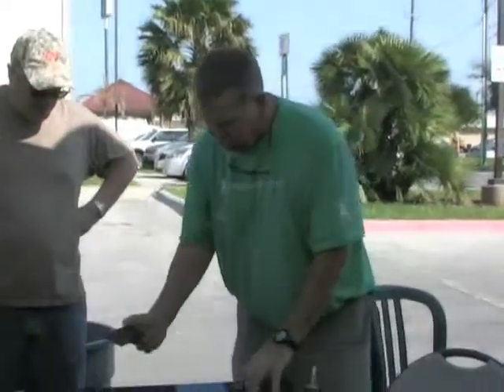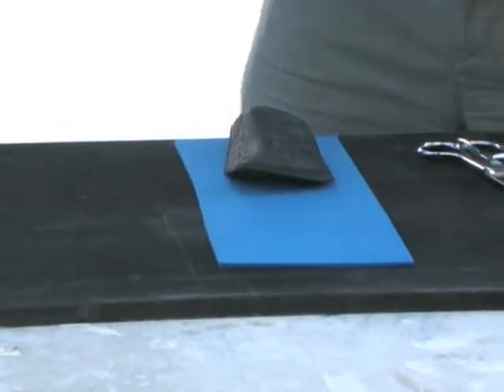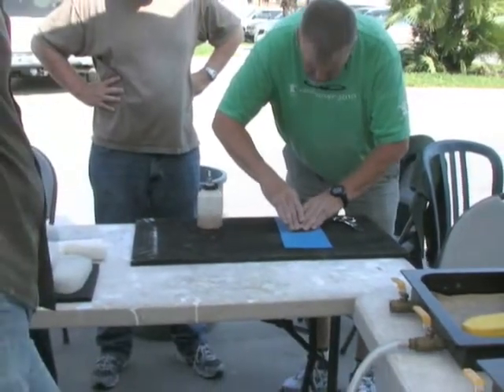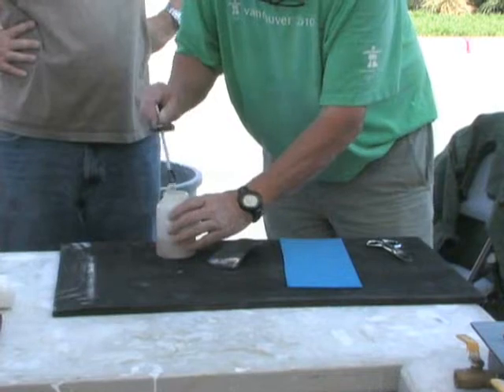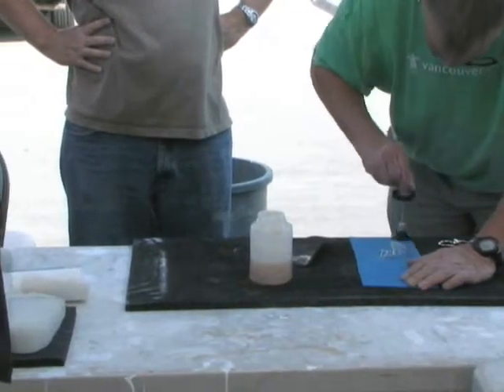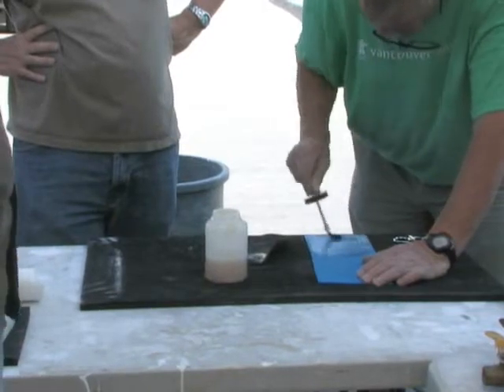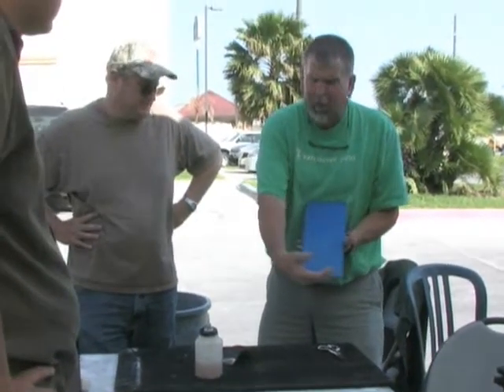We've got our piece finished off and polished — everything's real nice. I want to get a piece that will give me a long enough piece to go into the shoe. I take a little bit of glue, put the glue on the distal edge, take it over to the top cover, move it back — that gives me a glue line. Now gluing the top: I glue from that glue line, side to side, not up beyond it — just right to it. So now it's glued from the distal edge, side to side, all the way to the end.